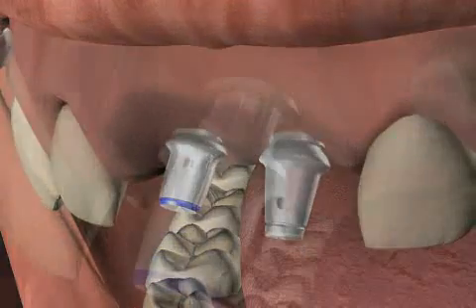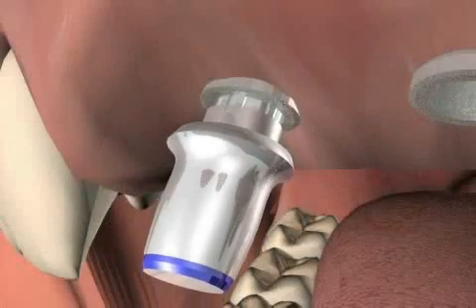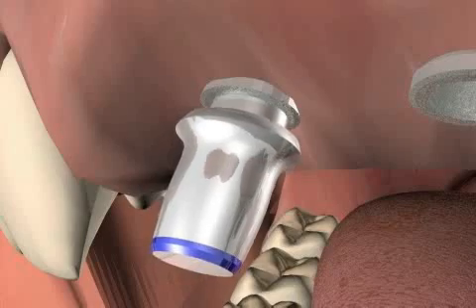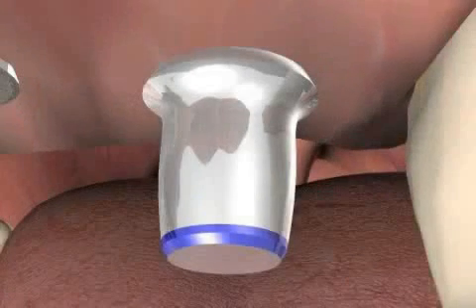The disadvantage of this so-called plug connection is the micro-gap that exists between the abutment and the implant. You can find out more in the video entitled 'Micro Gap'.